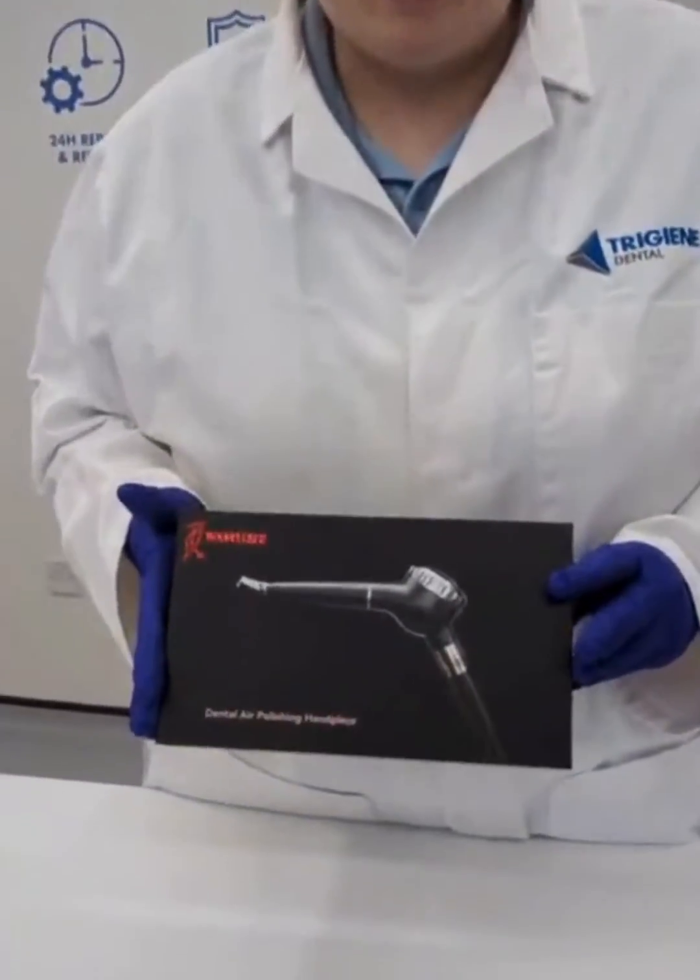Hi, it's Lucy from TriGene and today I'm going to be showing you our product of the month. It is the Woodpecker air polishing unit.